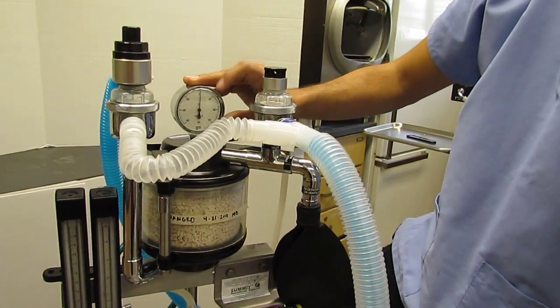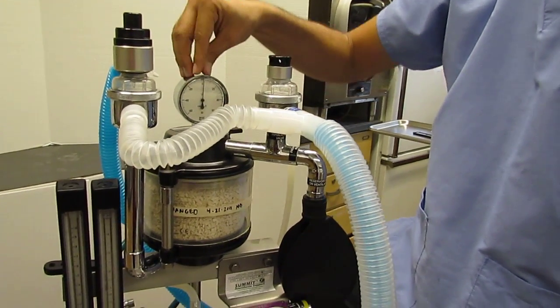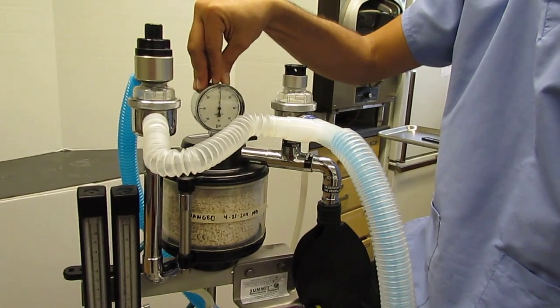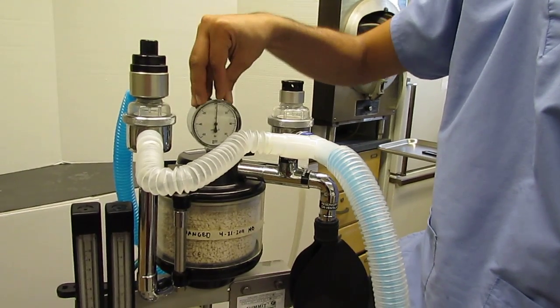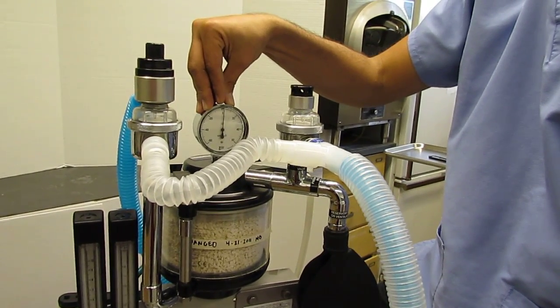You always want to keep it under 20. Anything above 20 starts hurting the lungs of the patient, and so we want to make sure that we keep the pressure going into the patient's lungs under 20 centimeters of water, okay?